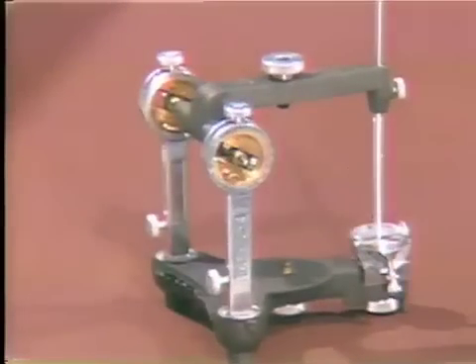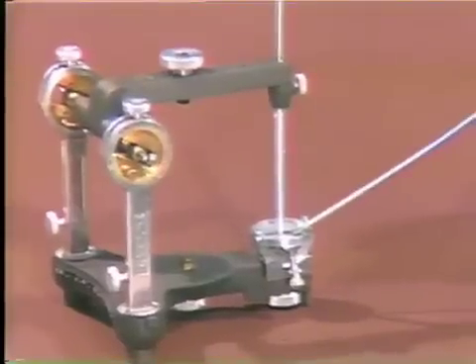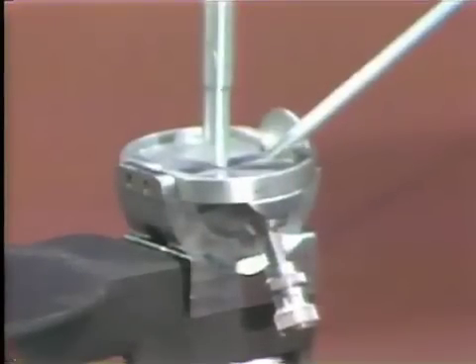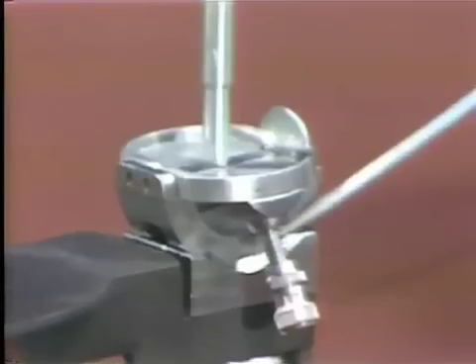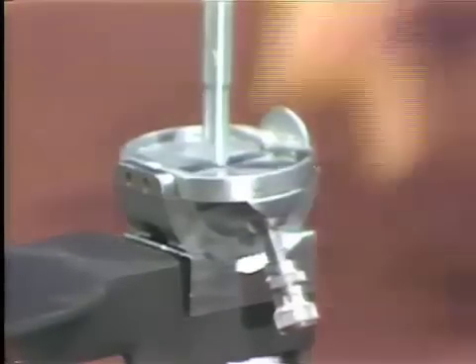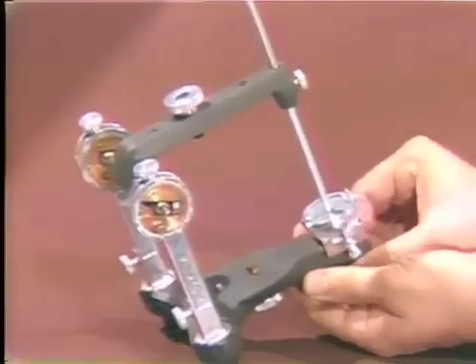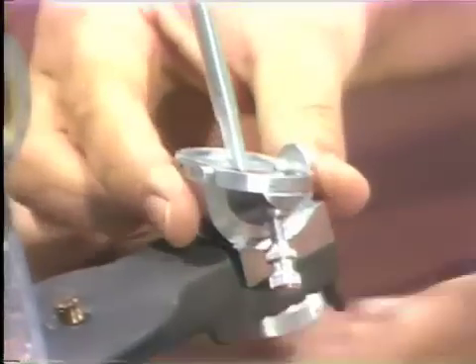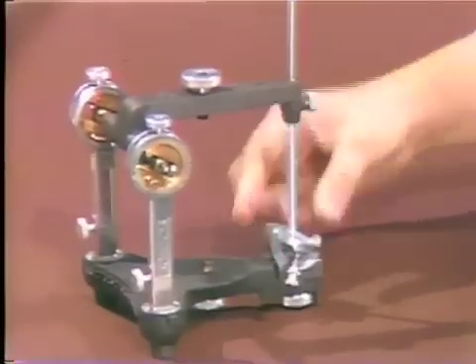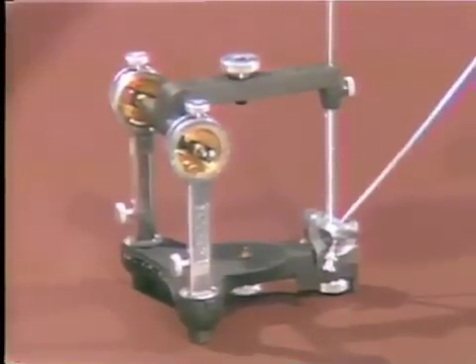In the front part of the articulator, we have this table and this pin. This is called the incisal pin, and this table is called the incisal table. It allows us to set and establish, by this mechanical equivalent, the incisal guide table angle. By tipping the articulator slightly and loosening this bolt on the bottom of the instrument, one can rotate this table in an anterior and posterior direction, setting the mechanical equivalent for the incisal angle. This is an anterior-posterior reading, or the horizontal incisal angle.